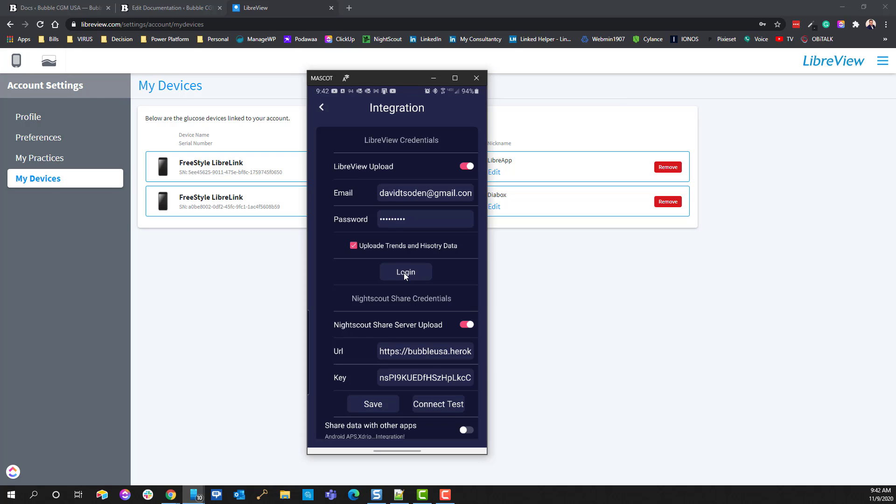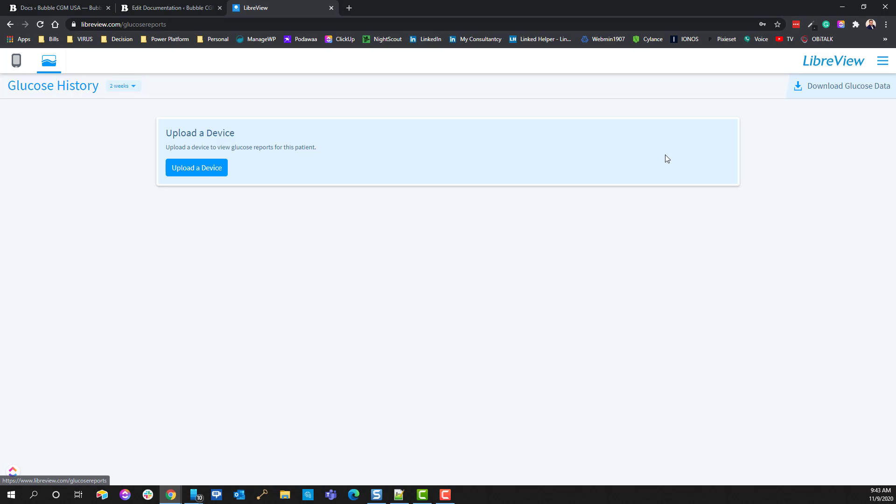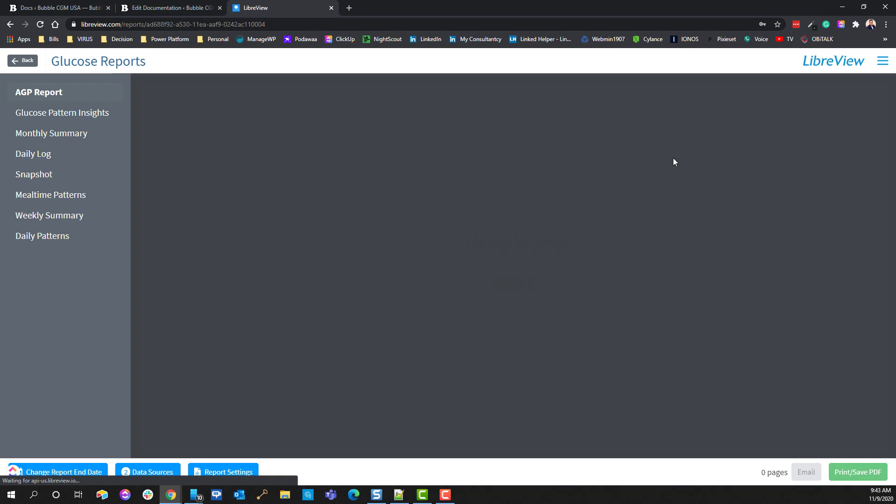So, very important. This just started happening where they only allowed you to do one device at a time, which is helpful, because what was happening is that you're getting skewed reports over here. And what will happen is that it'll tell you, oh, we found two devices or two data sets coming from two different devices. We're going to go ahead and merge that, and sometimes it caused problems. And occasionally, see, here you go, merge, data merged from two sources.